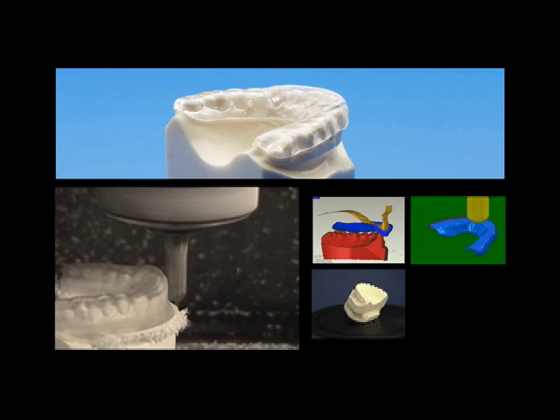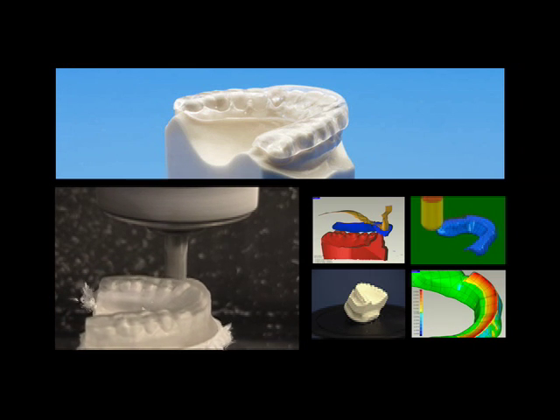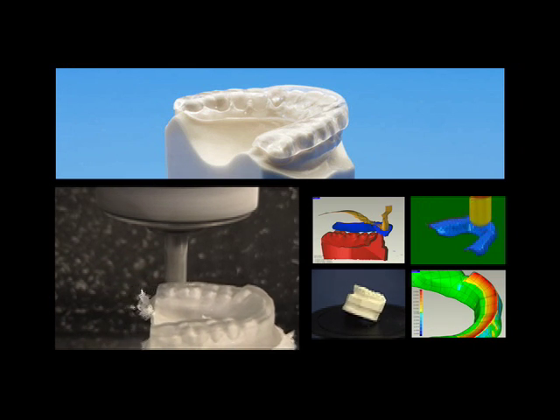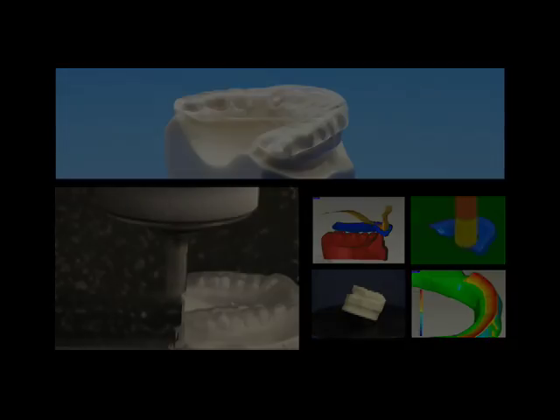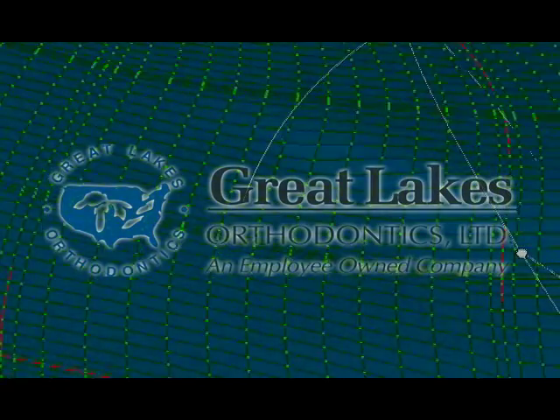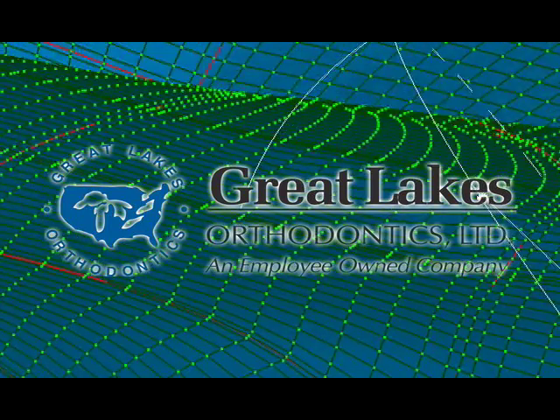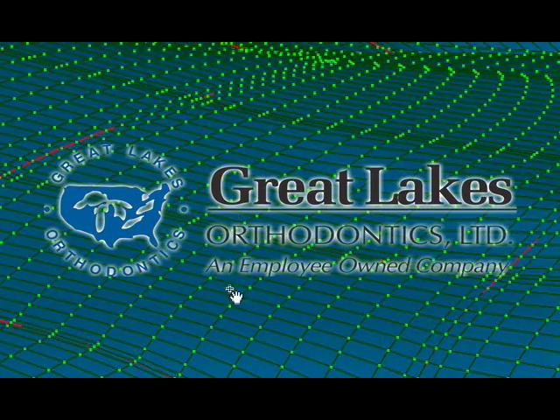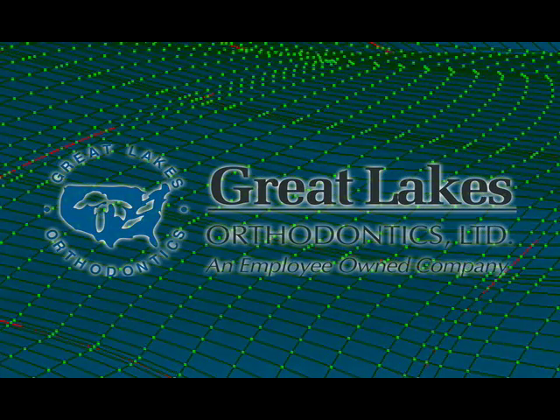Occlusal splints with flat, accurate, and reproducible surfaces can now be routinely produced.